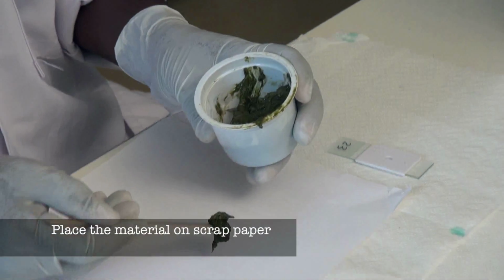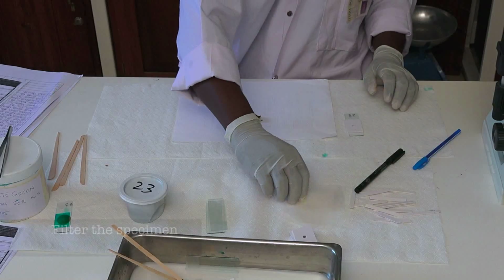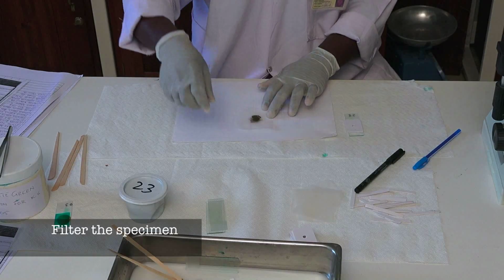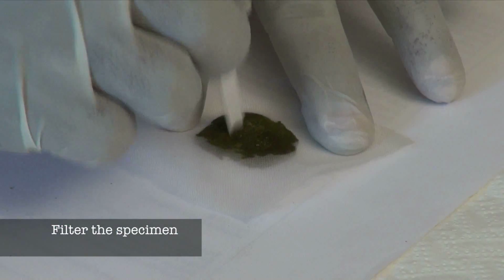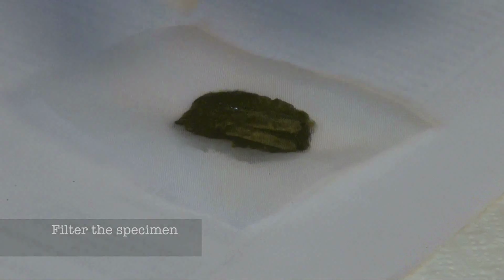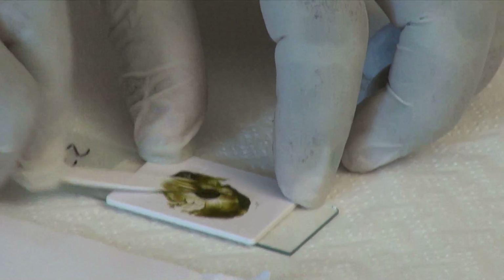Place a small amount of fecal material onto the scrap paper. Press the nylon screen on top of the paper and scrape the flat-sided spatula across the upper surface of the screen to collect the filtered feces. Add the feces from the spatula to completely fill the hole.